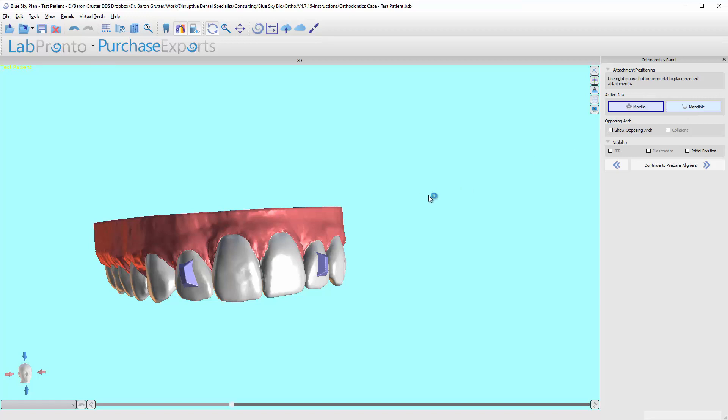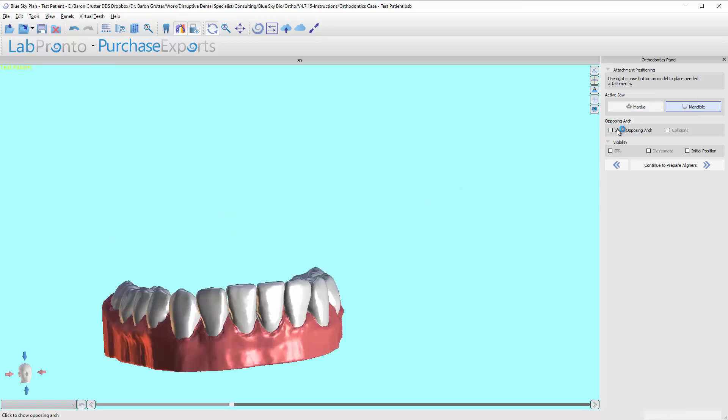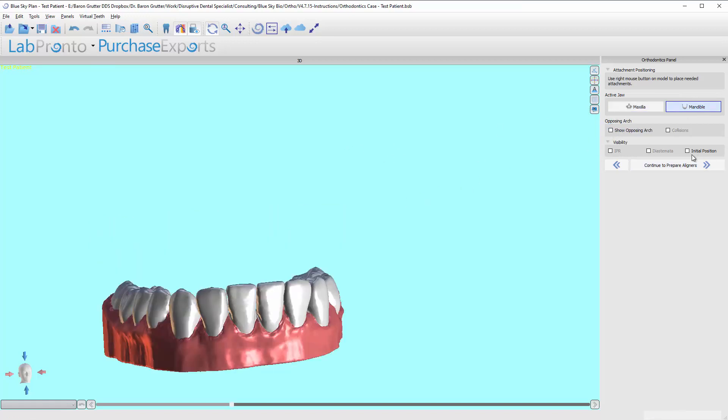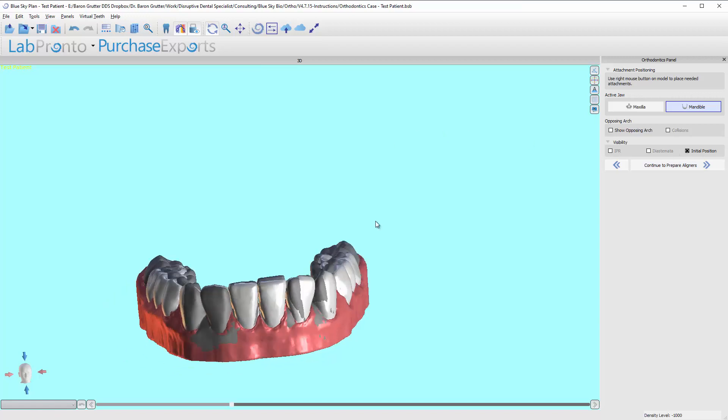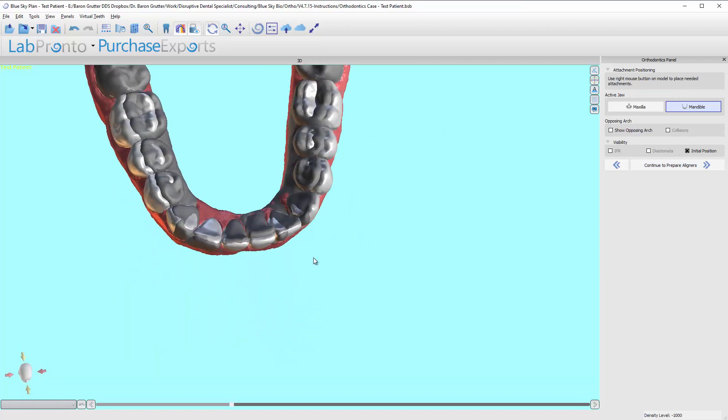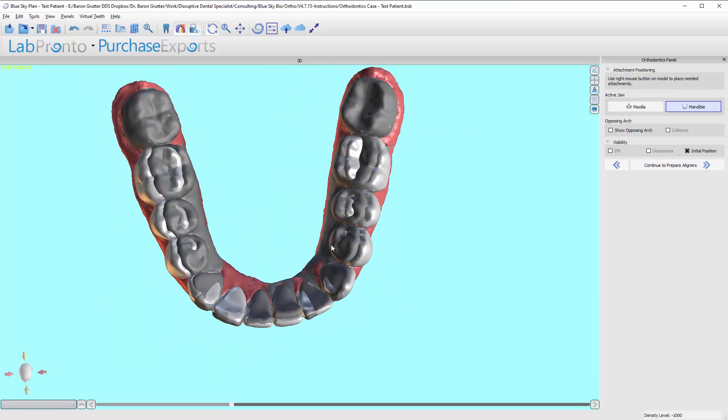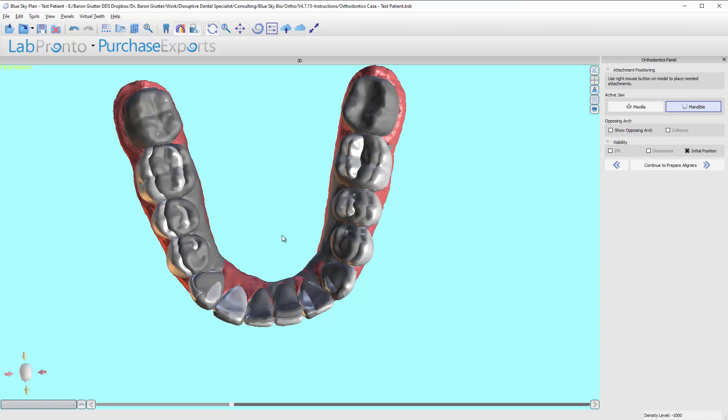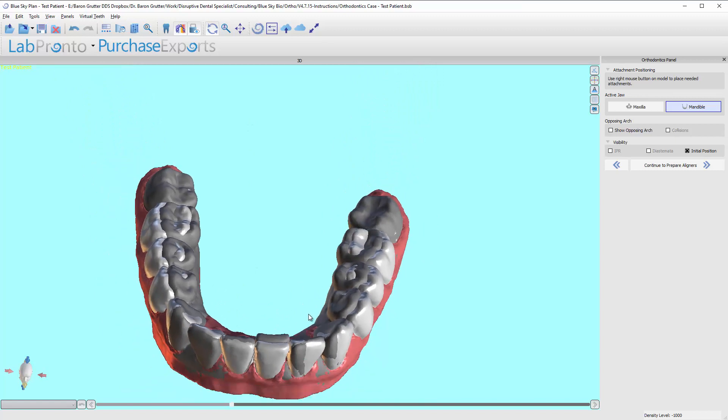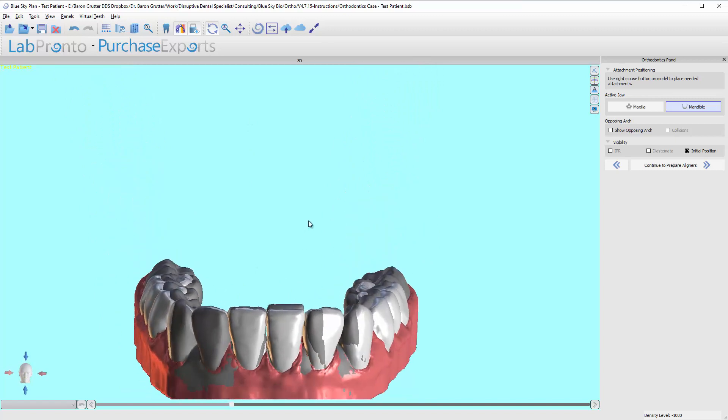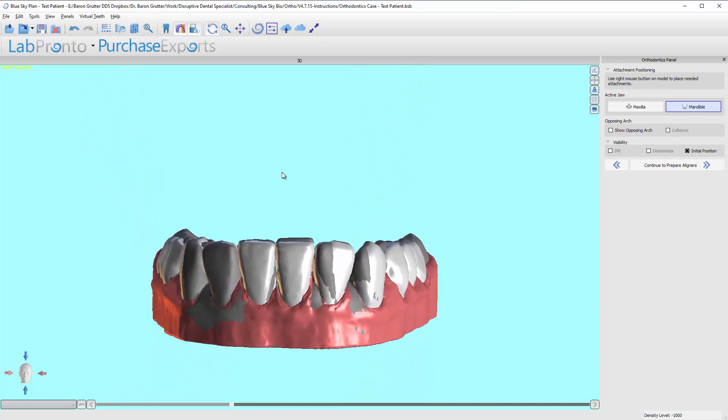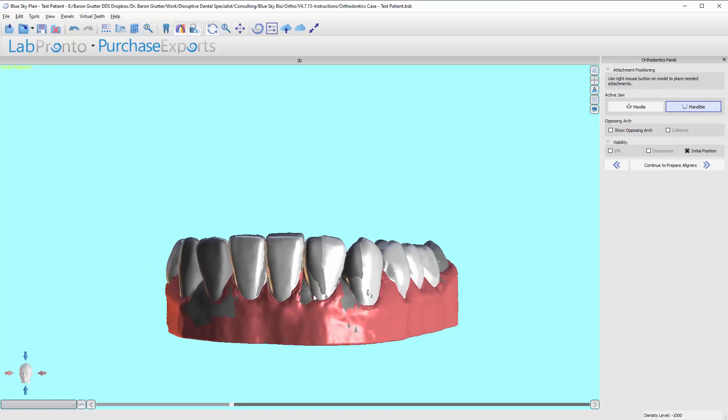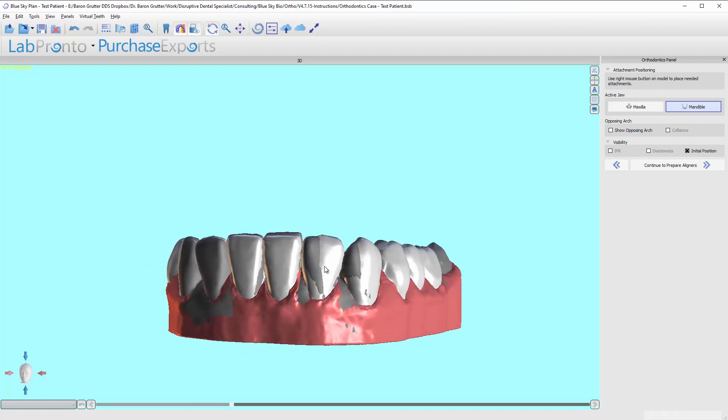On the mandible, I don't necessarily need to go through this whole thing just since this is just a demonstration video. But there's mainly just pushing these, tipping these teeth outward. There's a rotation here and a rotation in this canine. So I would probably put buttons on those. There's a little bit of intrusion of this tooth. But since there's going to be a button on this one, I probably wouldn't worry too much.